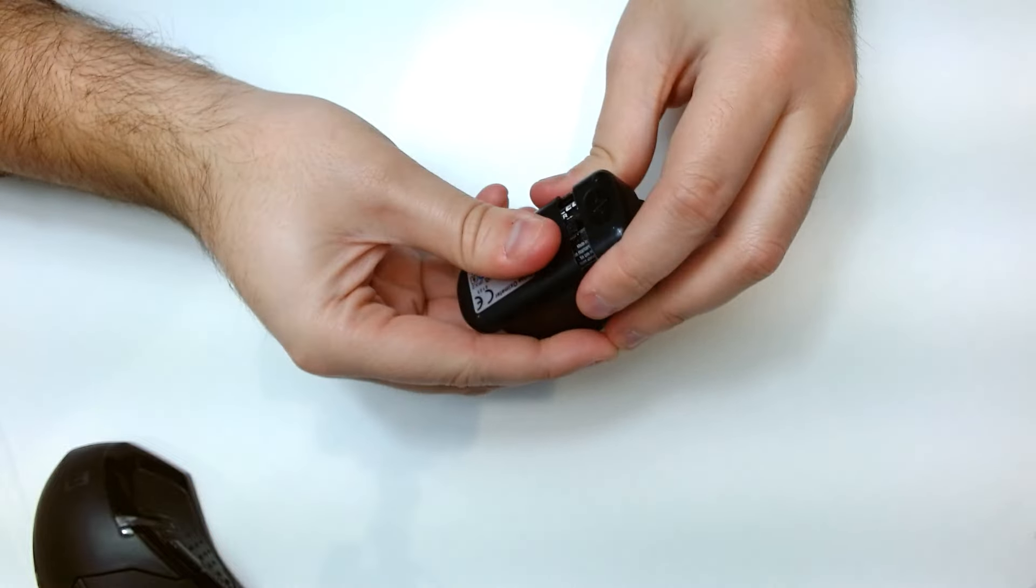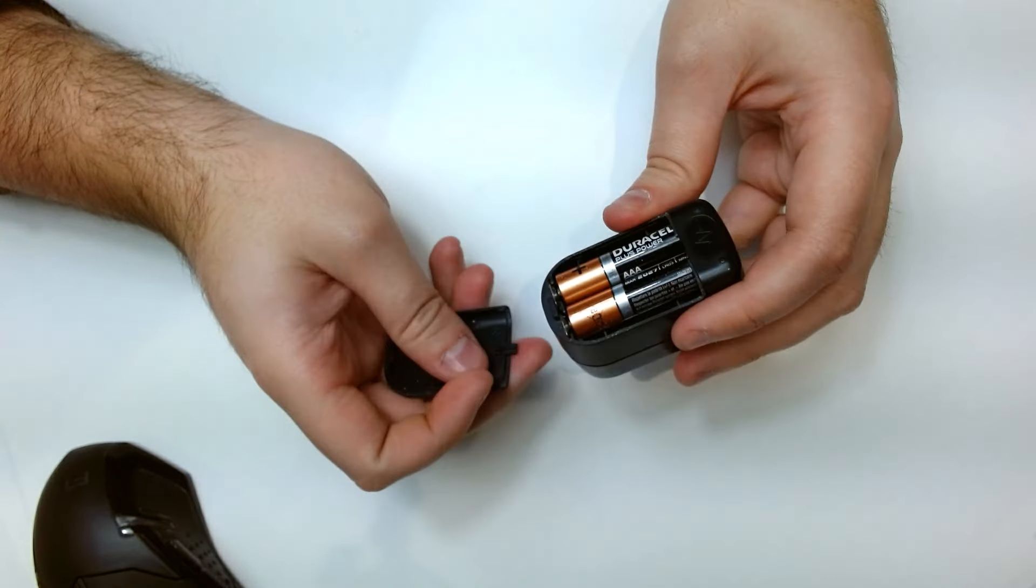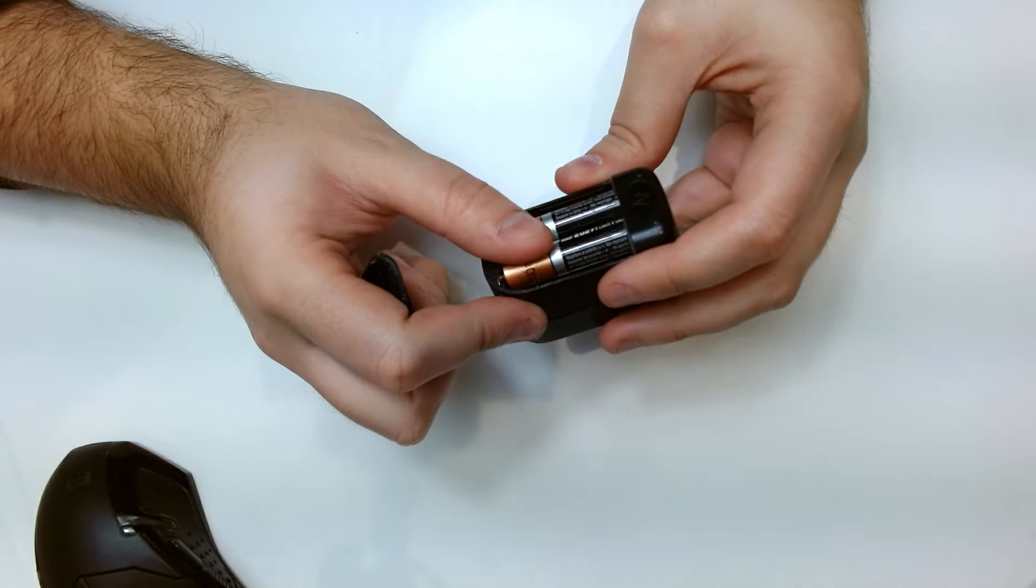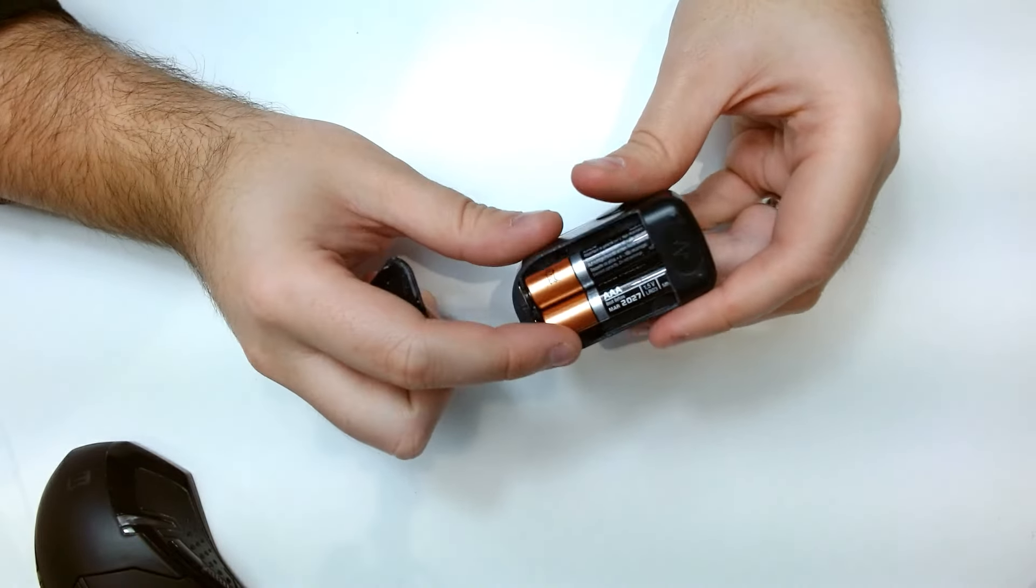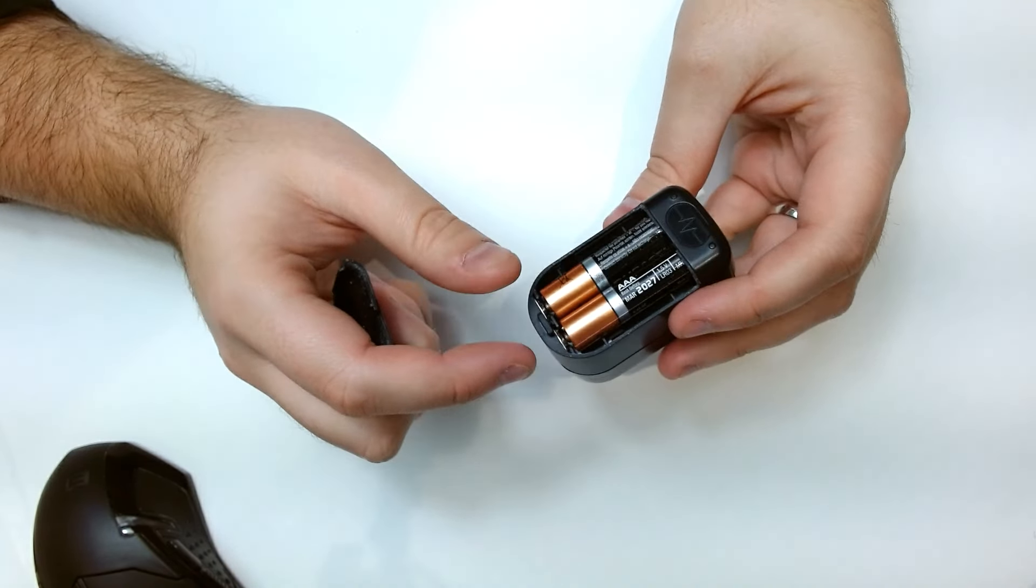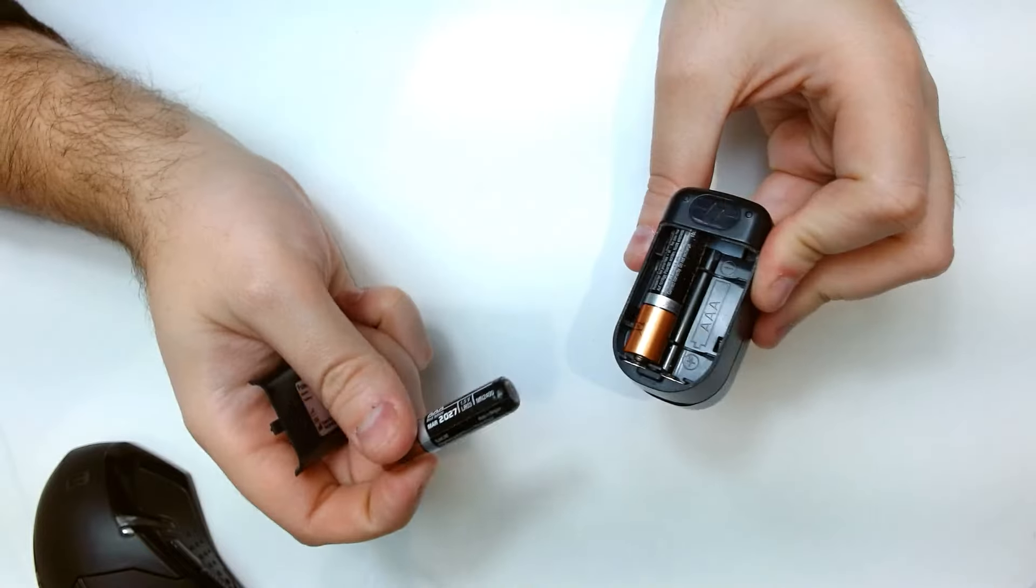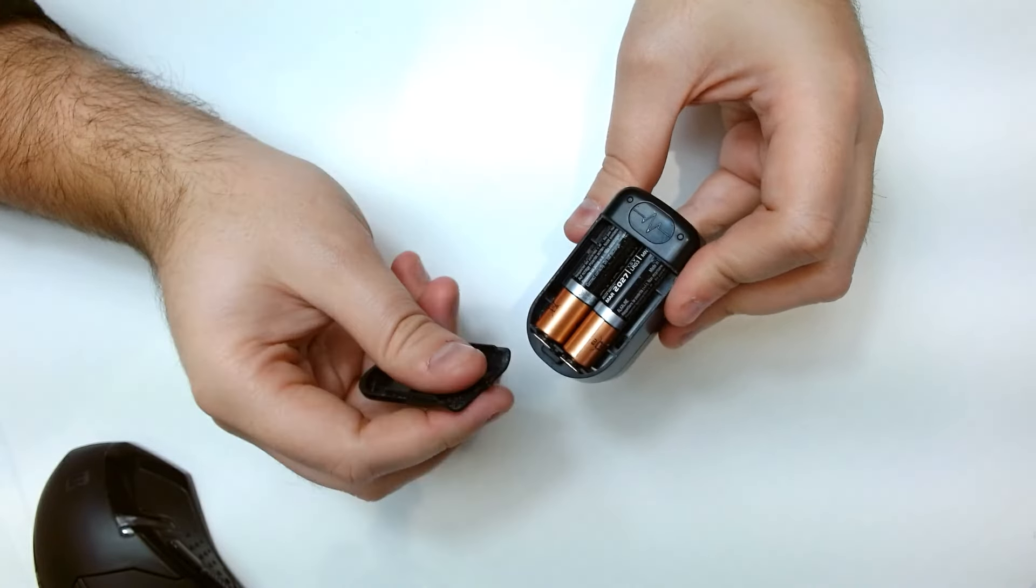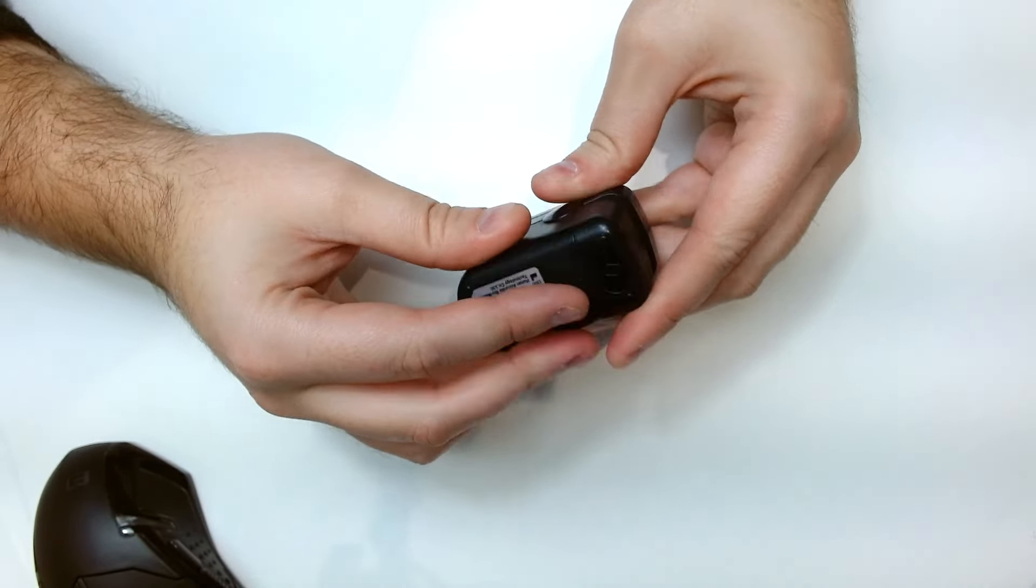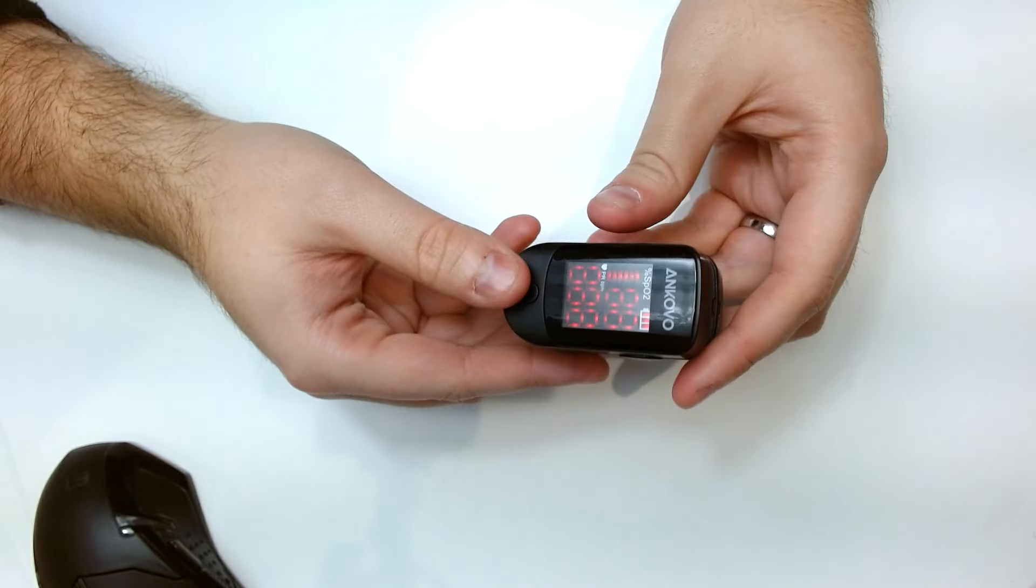It's powered, let me open it up, by two little batteries and I believe these are triple A batteries. You just slot them in just like that and then you slide this over.